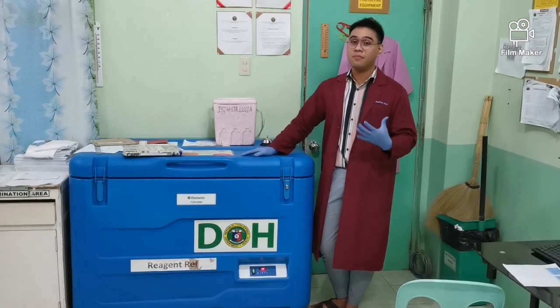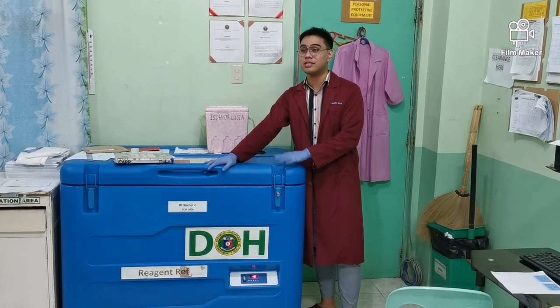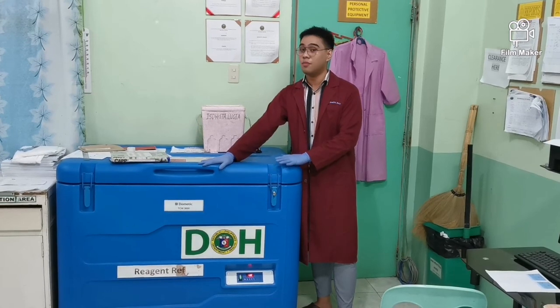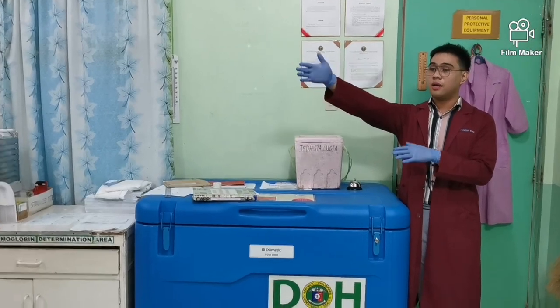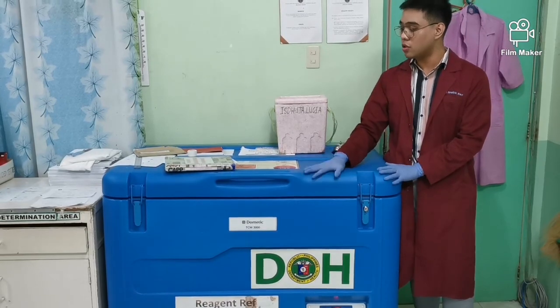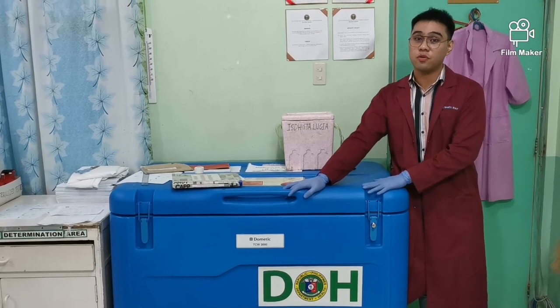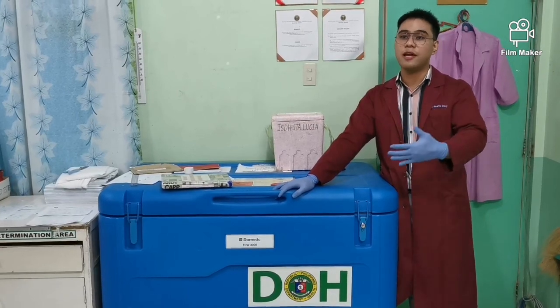Also, when you go to blood banks, you might be surprised why there are big coolers. Okay, actually this is not a cooler, this is actually a refrigerator. Here you again store your freshly collected blood or sometimes your screened blood. So as an alternative to the refs I showed earlier, we can also use this. Actually, you can also set this to a freezing temperature to get fresh frozen plasma. So that the plasma is frozen to prolong its shelf life, and you can thaw it later on for our coagulation factor.